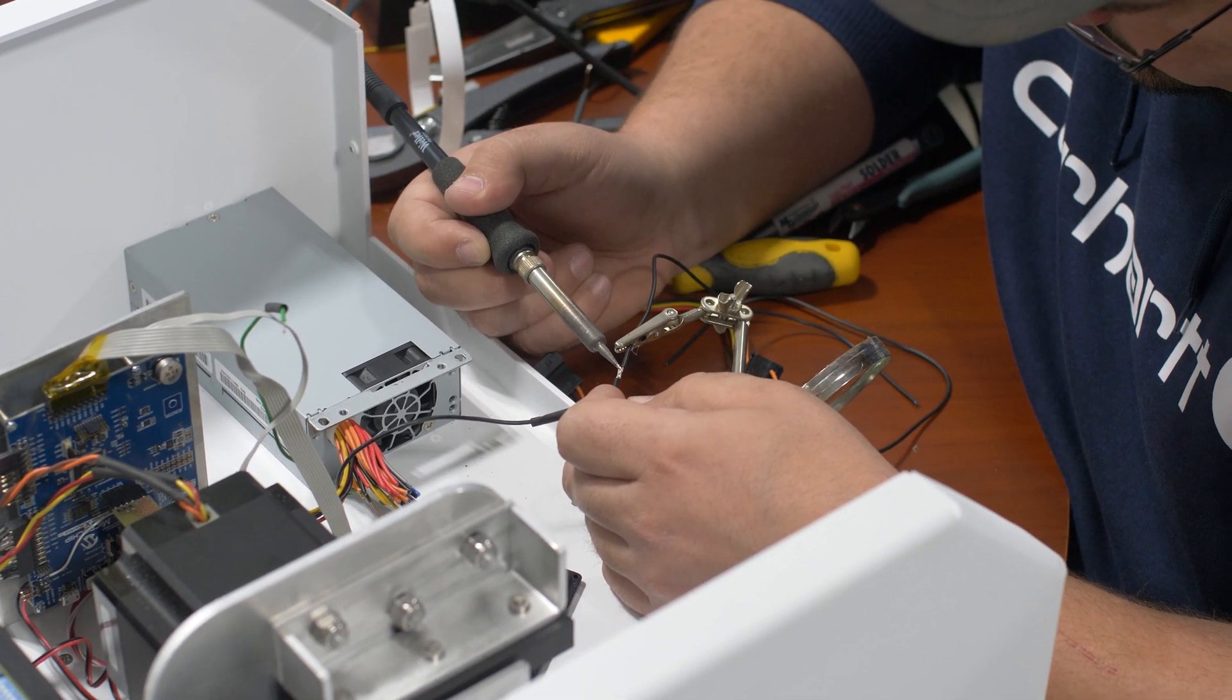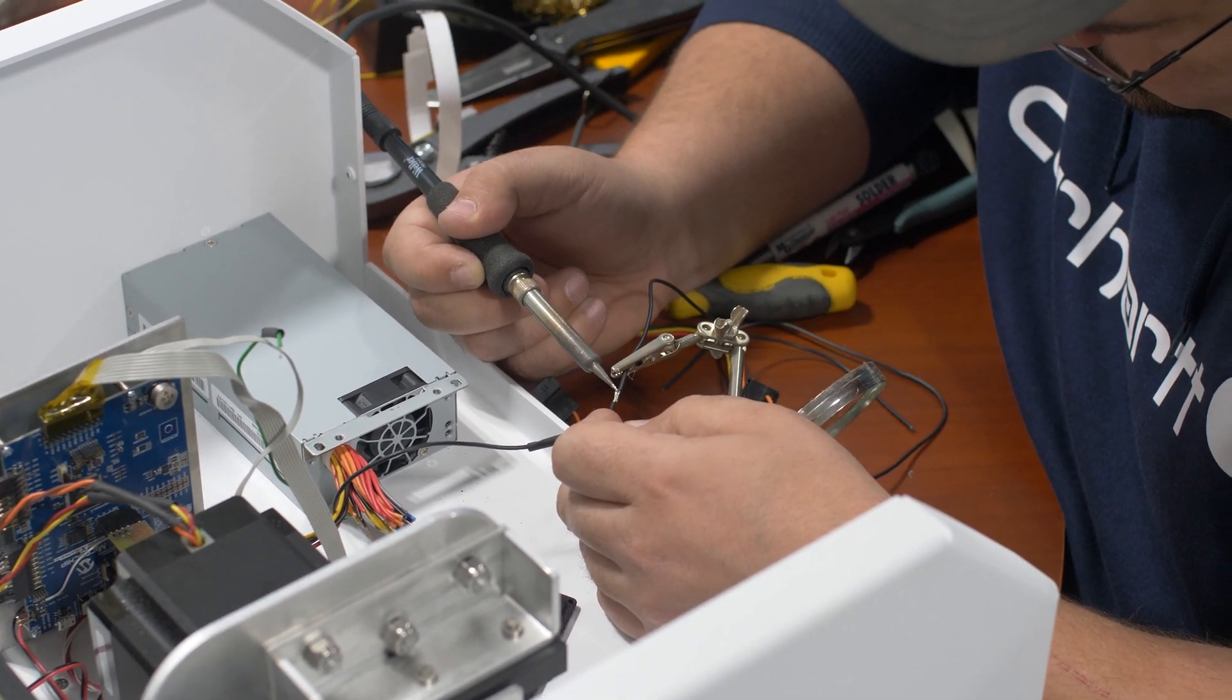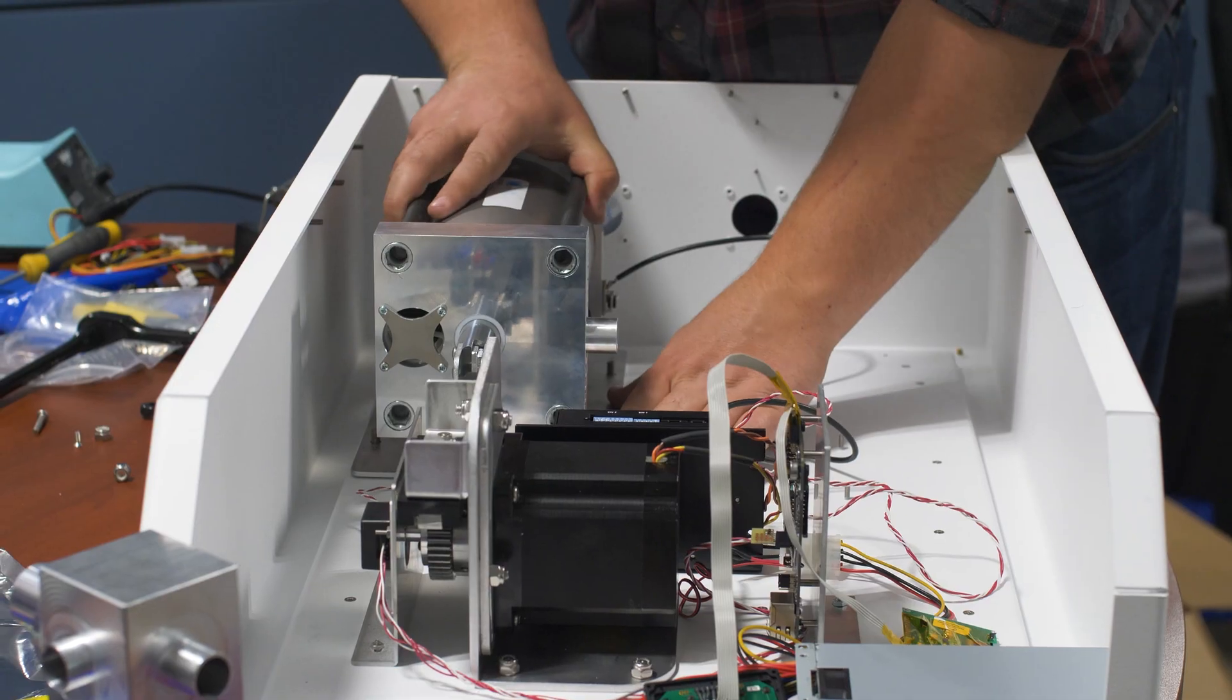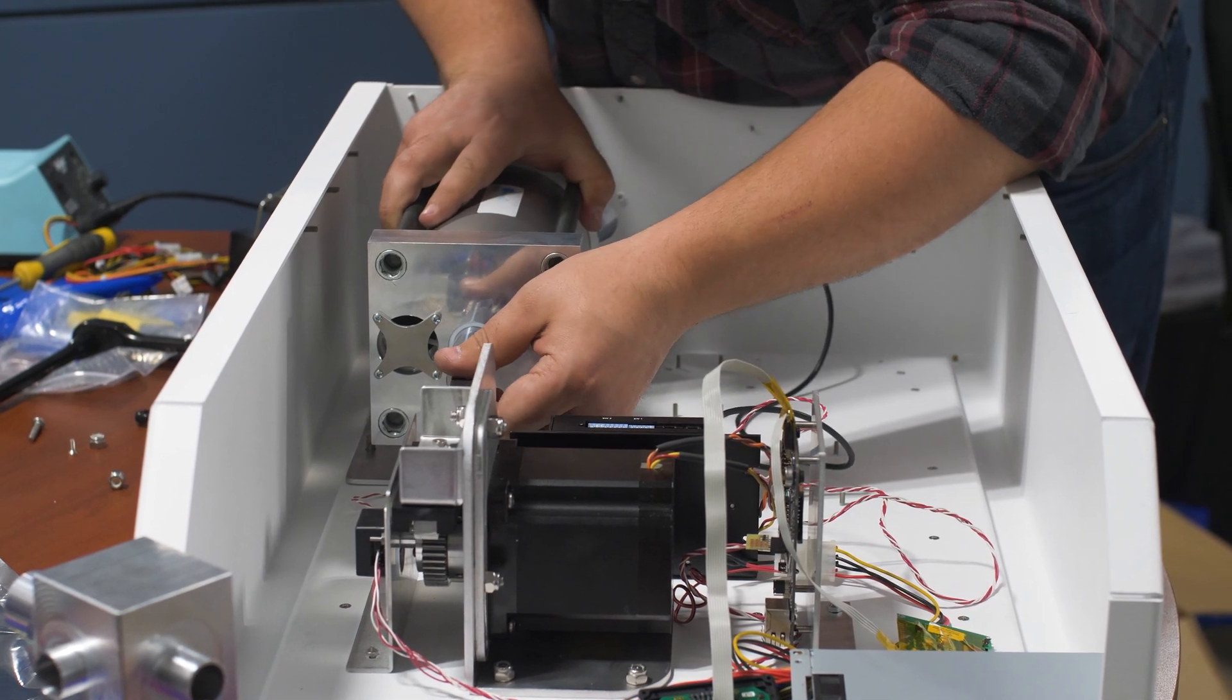We were finding that we were seeing some shortages already, so we made the conscious decision to move away from that and make all our own check valves, regulators, everything—we made it in-house here from scratch.